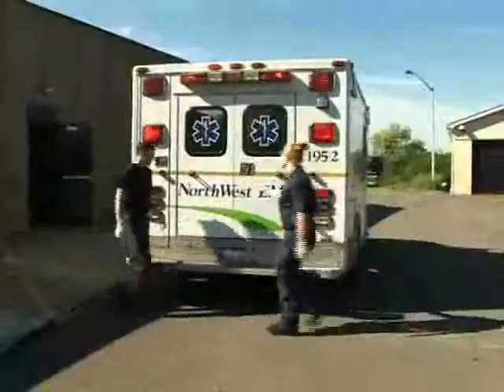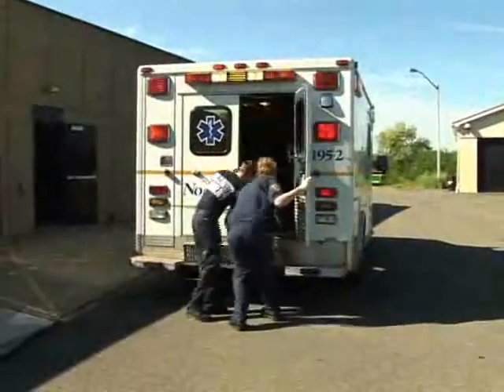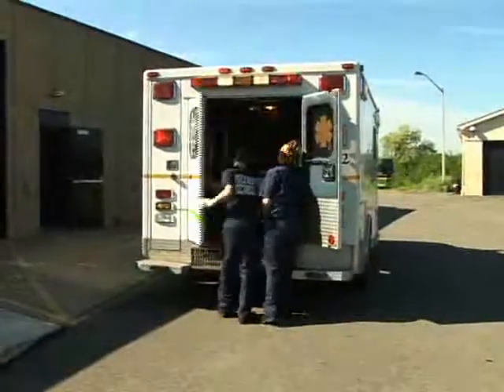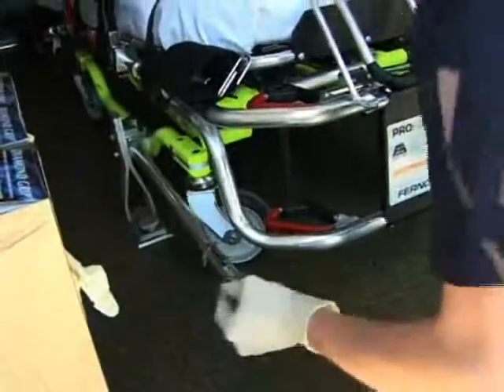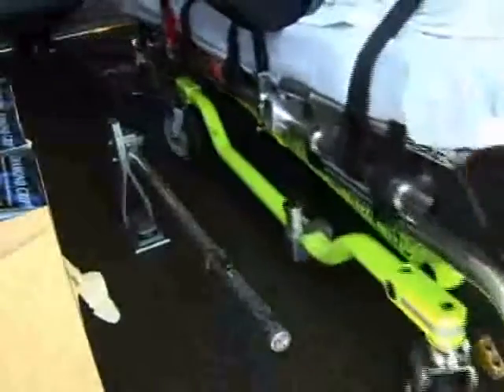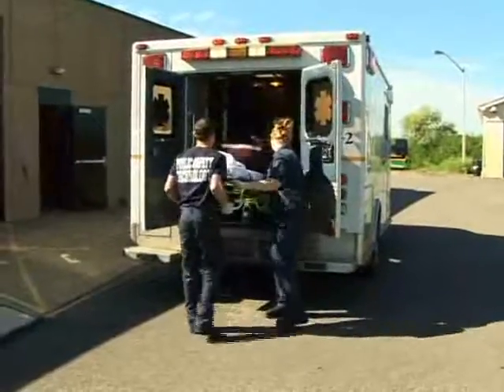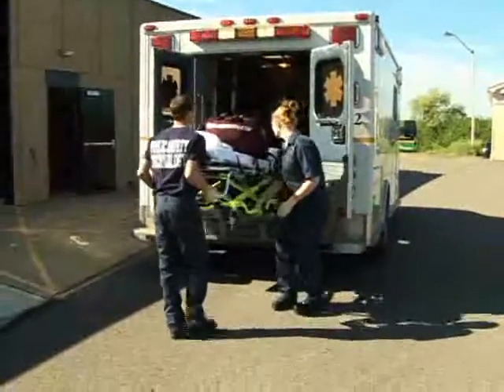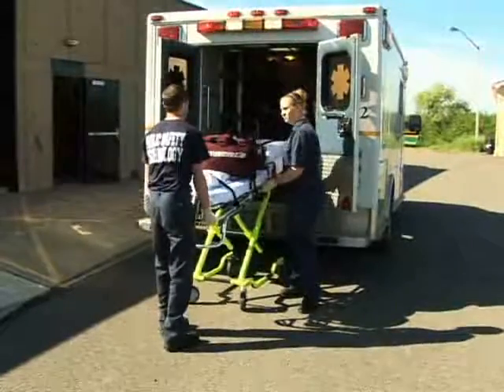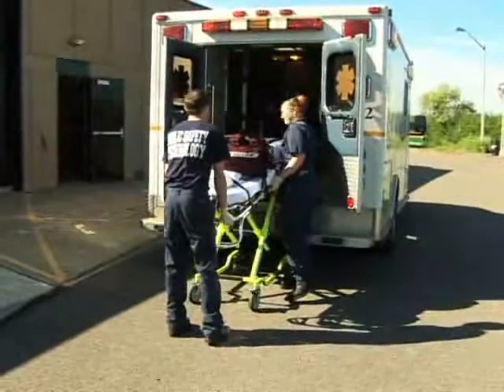To unload the cot from the ambulance, release the locking mechanism for the cot. Begin unloading the cot by lifting and rolling the cot. The second person should guide the undercarriage to the ground and ensure the wheels have locked before completely removing the cot from the ambulance.